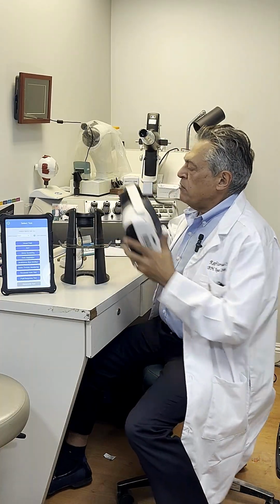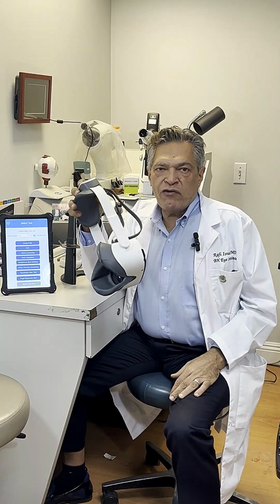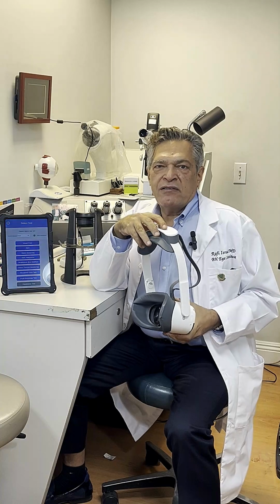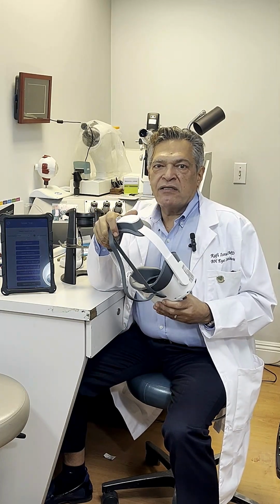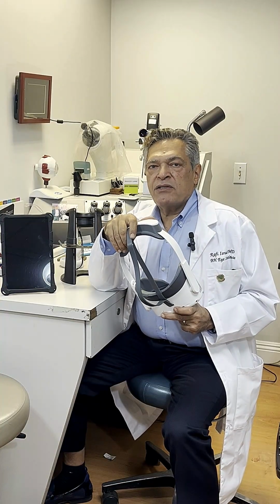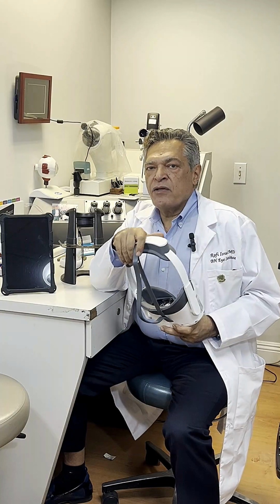What I'd like to talk about today is the virtual reality visual field analyzer, which is this device that we came out with in 2018 as the first company with this technology. But now this technology has grown and has become much more than just a visual field analyzer.